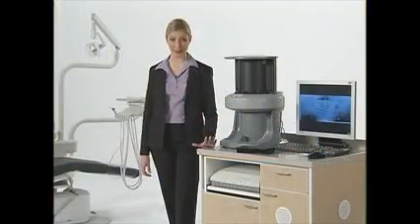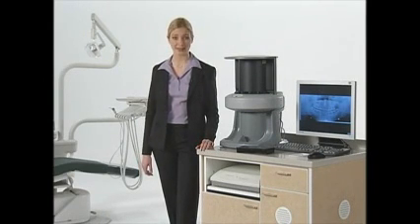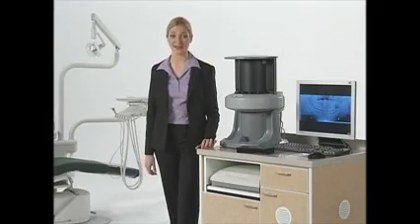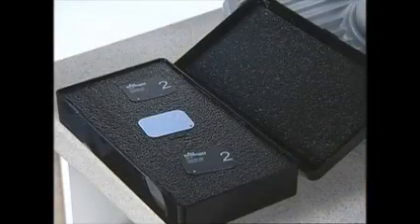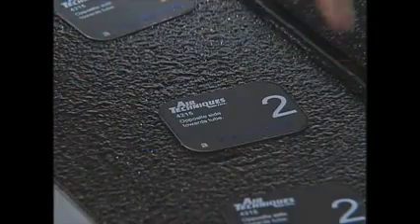Now, this is important. When the plate lands in the transfer box, make sure the sensitive side, the blank side, is facing down. If it's not facing down, turn the plate over the right way, otherwise the plate can begin to erase.